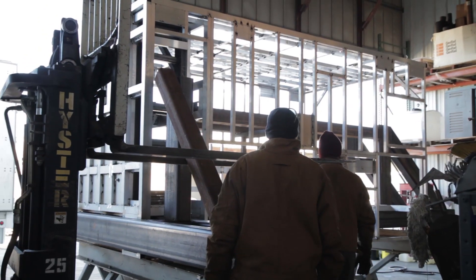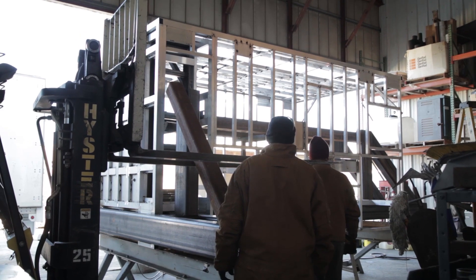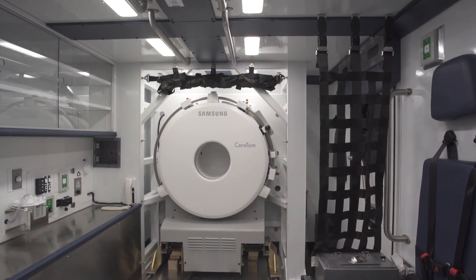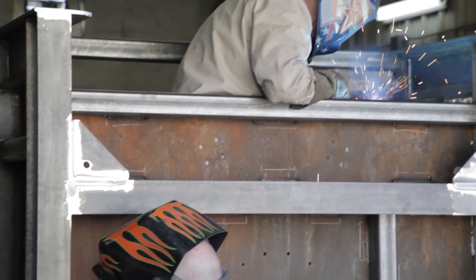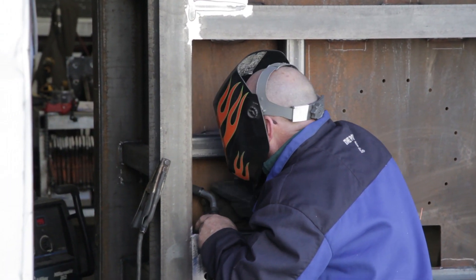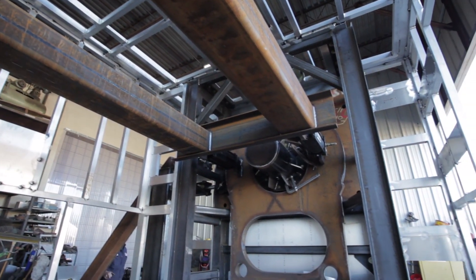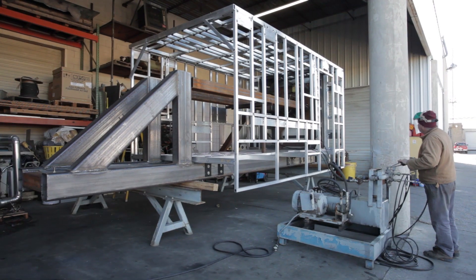When it came time to actual testing, there was a standard put out by SAE — the Society of Automotive Engineers — called J3043, which describes equipment mounting and what the mount for the CT scanner needs to survive in the case of an accident. We came up with an approximation of the size, weight, and center of gravity of the CT scanner and used that in our testing. Our design has been tested to withstand a substantially higher g-force than what the SAE specification requires.